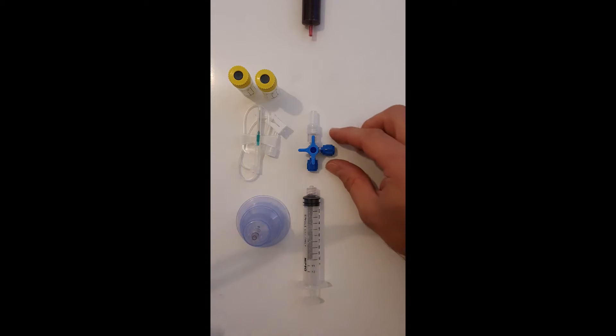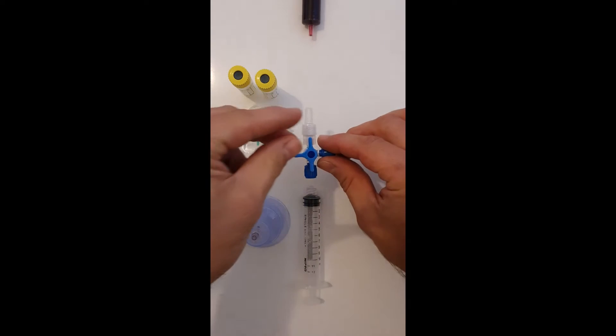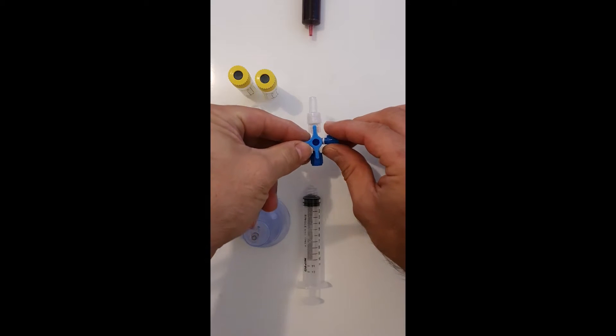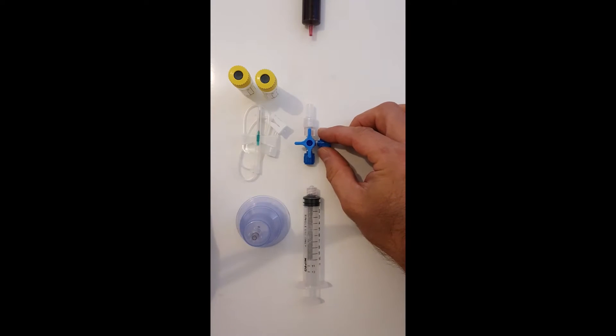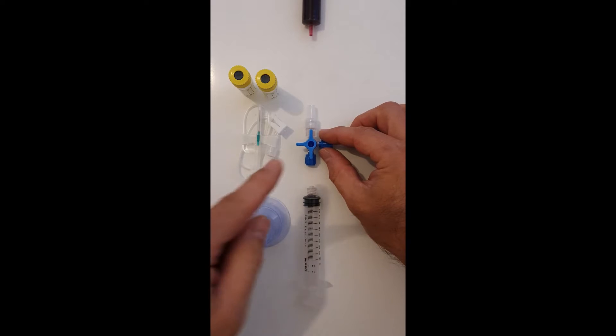Okay, so what we're going to do is first of all explain how the three-way valve can be used as part of the RTA 88 kit.